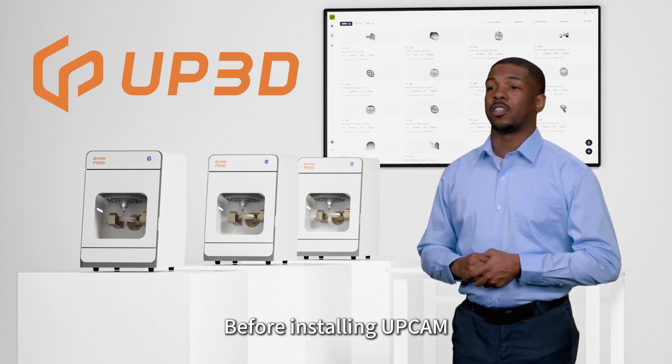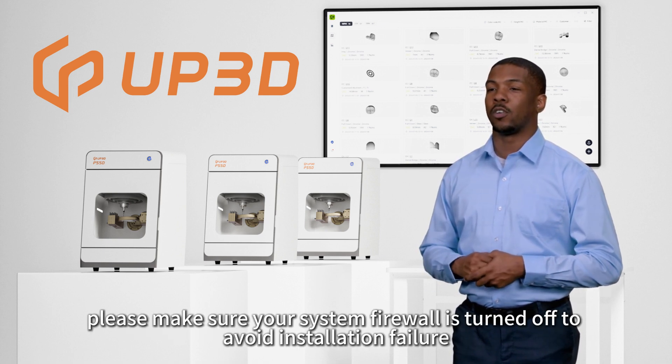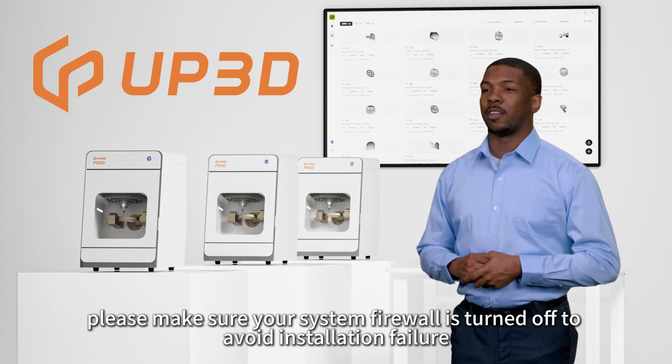Before installing UPCAM, please make sure your system firewall is turned off to avoid installation failure.